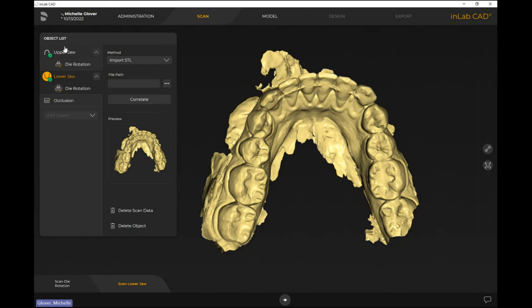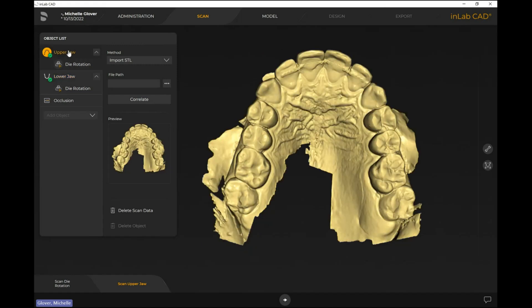For my upper jaw, I basically want to duplicate the exact same thing. I'm going to drag and drop — I'll hit 'copy upper' — drag and drop this over. It's going to ask: do you want to copy or move? I'm going to say copy, so I'm basically just duplicating my upper jaw twice, which will make sense in just a moment.